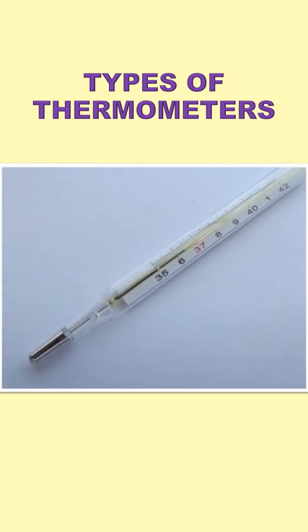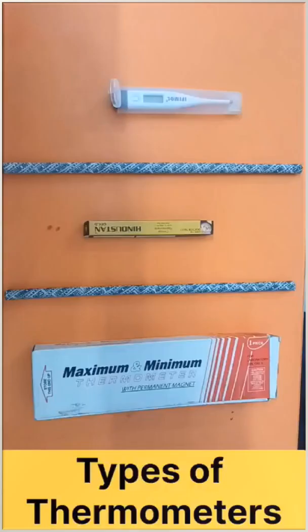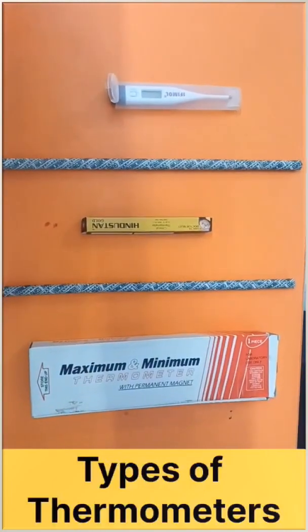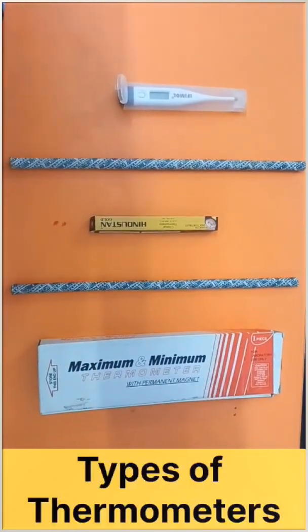Hi everyone, in this video we are going to learn about types of thermometers. You are observing different types of thermometers here.